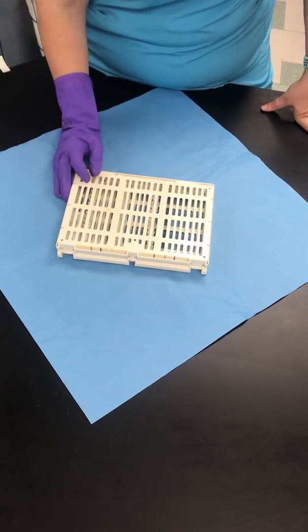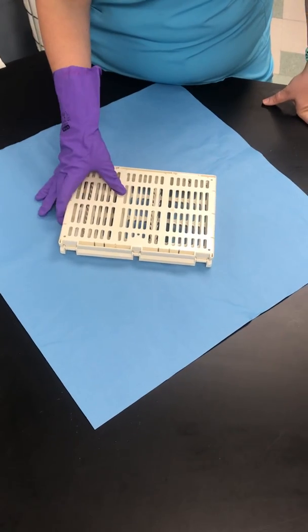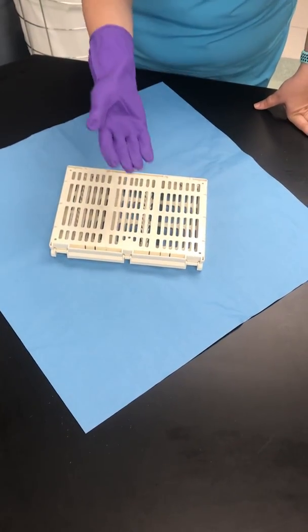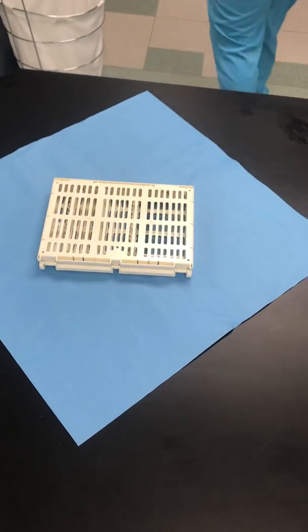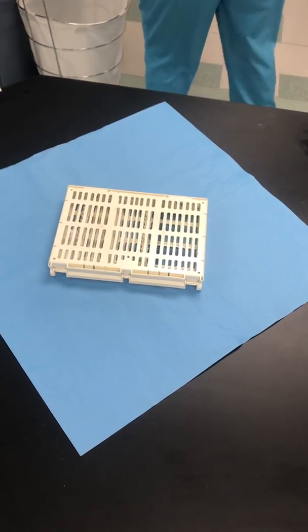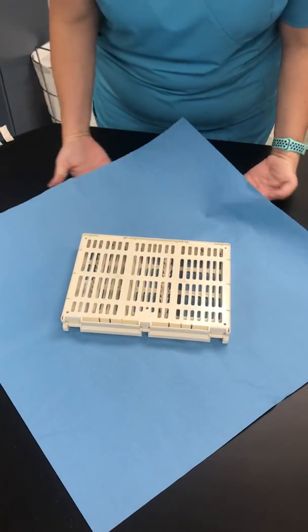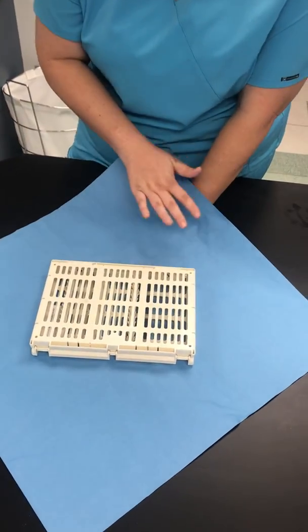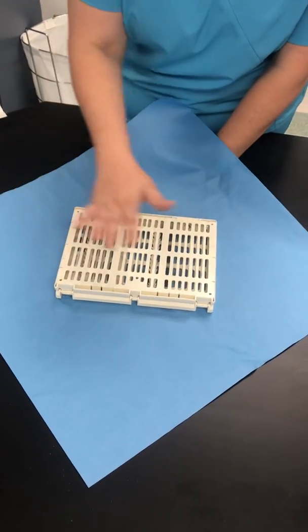You want to set that in the center. Once you've got it in place, that's when you can remove your glove. Do not touch any of this area with a clean hand because this area is considered contaminated.